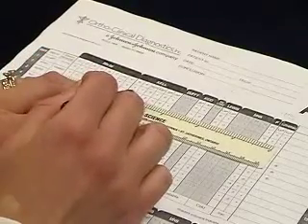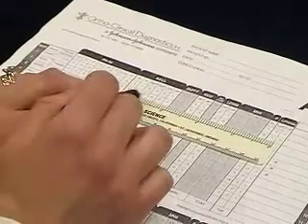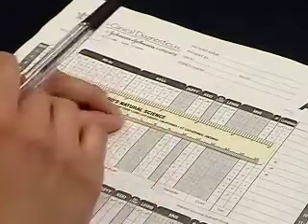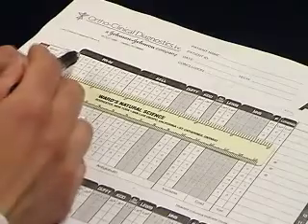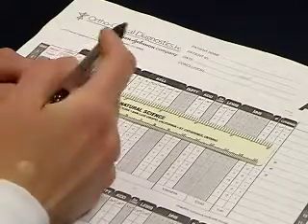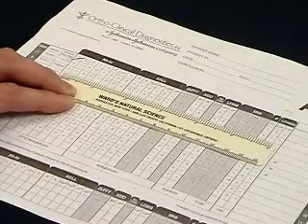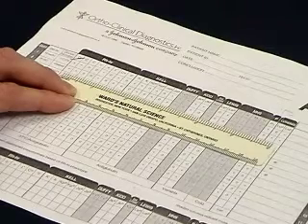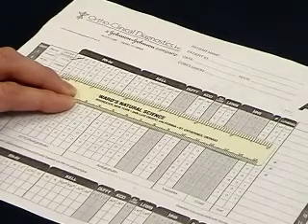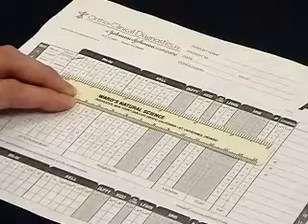Wherever you see a little plus mark, that indicates that that specific antigen in that column is present on the red cell. Zeros indicate the absence of that antigen. We begin in the left, and we look down and across with the plus cells. In this case, there is a plus for the D antigen. We can rule this out. This means that the D antigen is present on this cell, but the cell does not react. Therefore, that antigen cannot be responsible for the positive antibody screen that we have gotten.